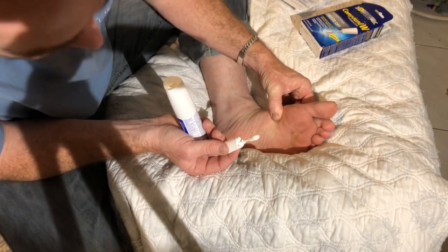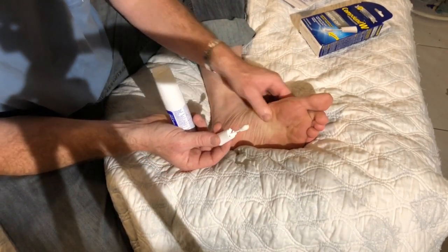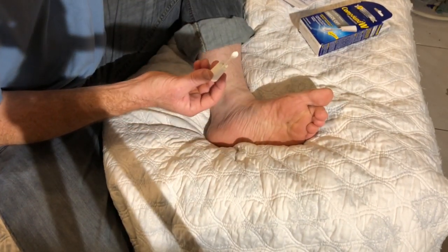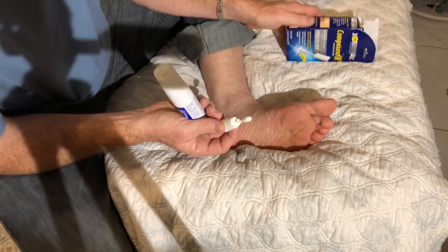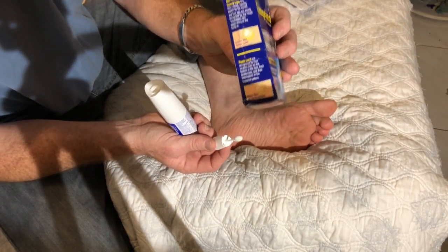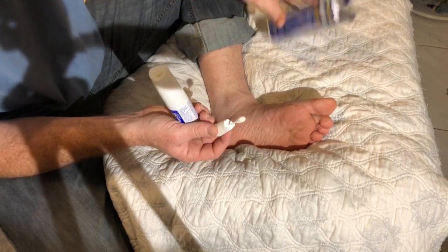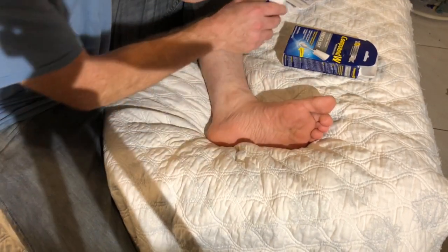That's basically how to do it, though you may want to do it for a different time. There are different kinds of warts — the common wart and the plantar wart — as shown in the picture on the packaging.